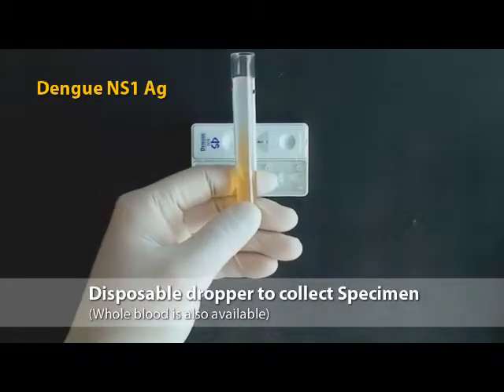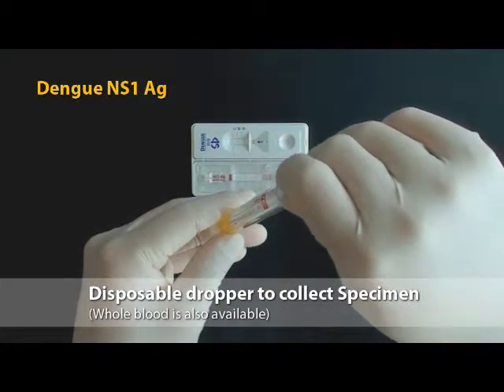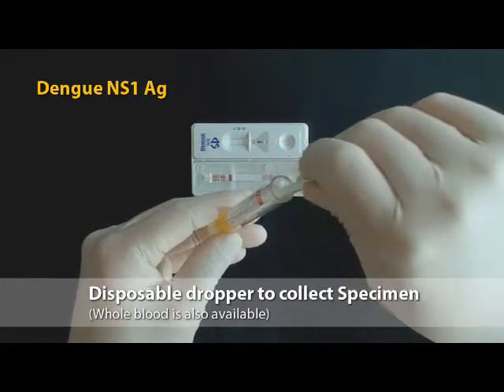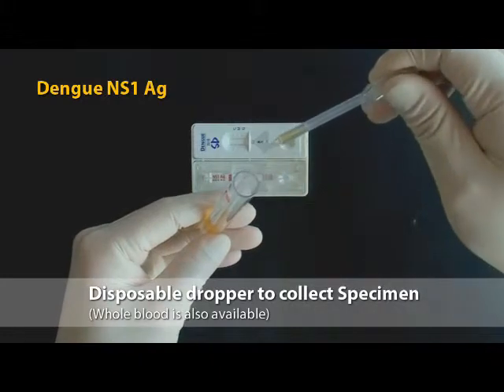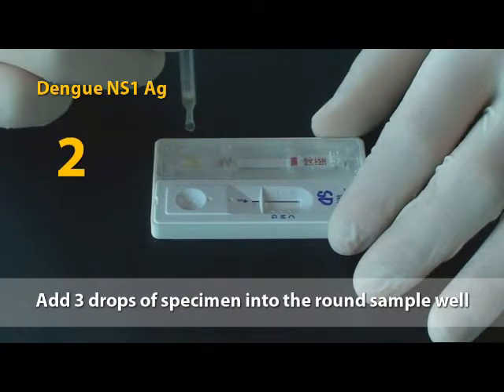For NS1 testing, using the disposable dropper provided, take serum or plasma sample from collection tube containing anticoagulants such as heparin, EDTA and sodium citrate, and add 3 drops of serum or plasma into the sample well marked S. 1, 2, 3.